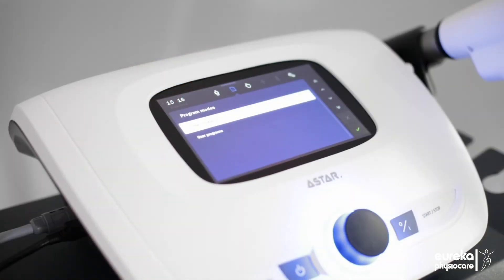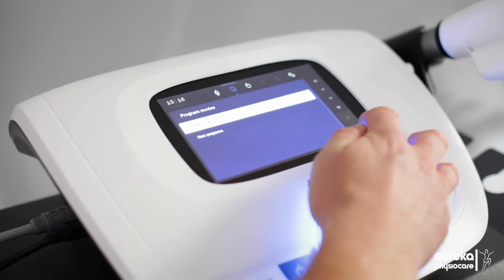One of the key benefits of this unit is it has the preset protocols which has a total of 44 preset programs.